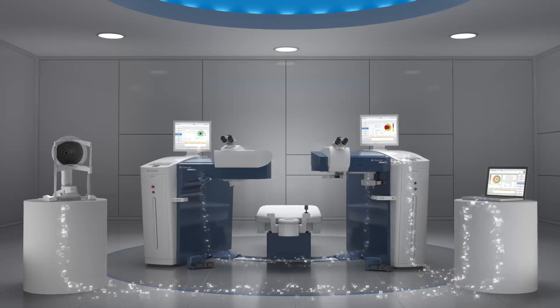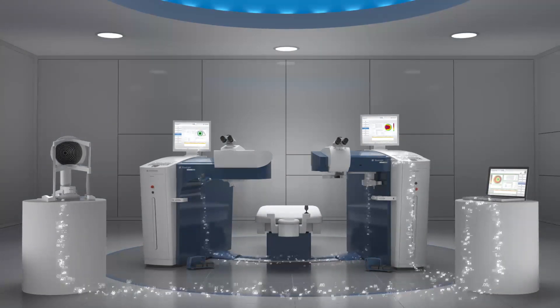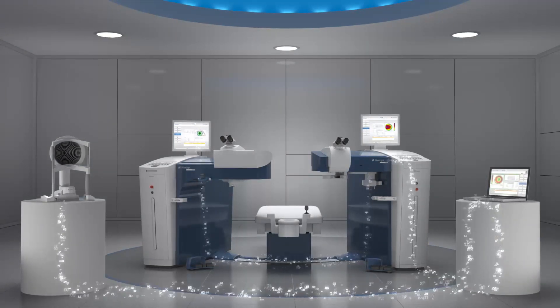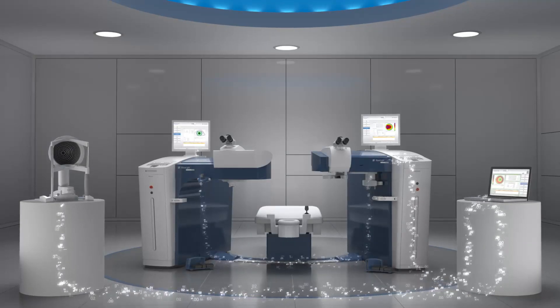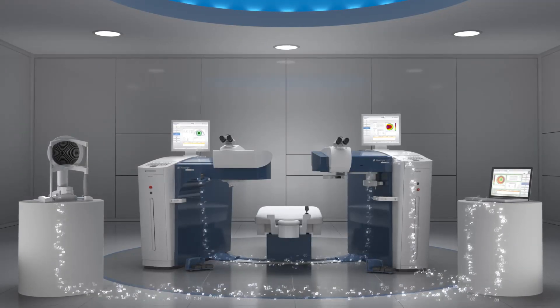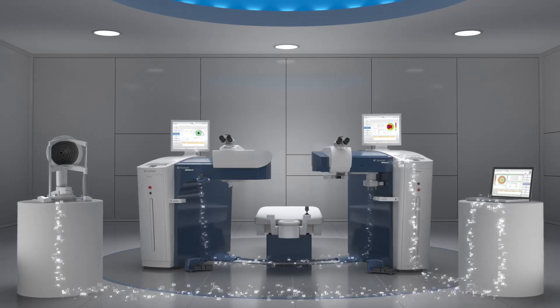The Wavelight refractive suite is truly the next leap forward in integration, customization, and accuracy. The Alcon Wavelight refractive suite delivers faster treatments and optimized outcomes.